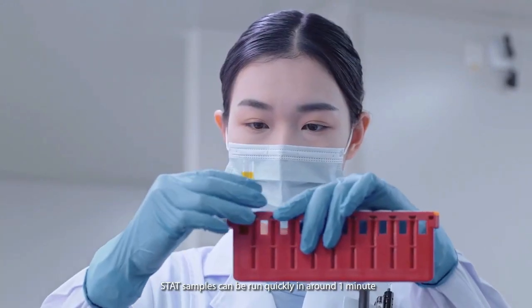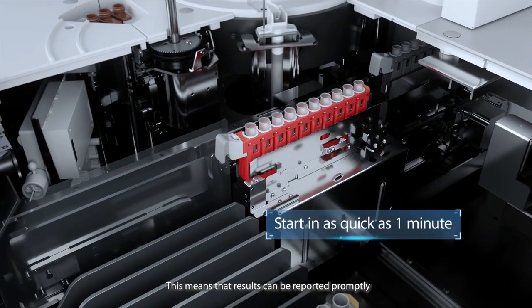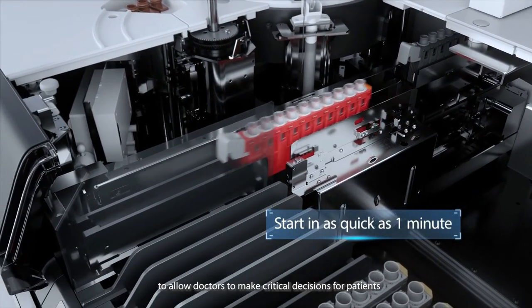STAT samples can be run quickly in around one minute. This means that results can be reported promptly to allow doctors to make critical decisions for patients.